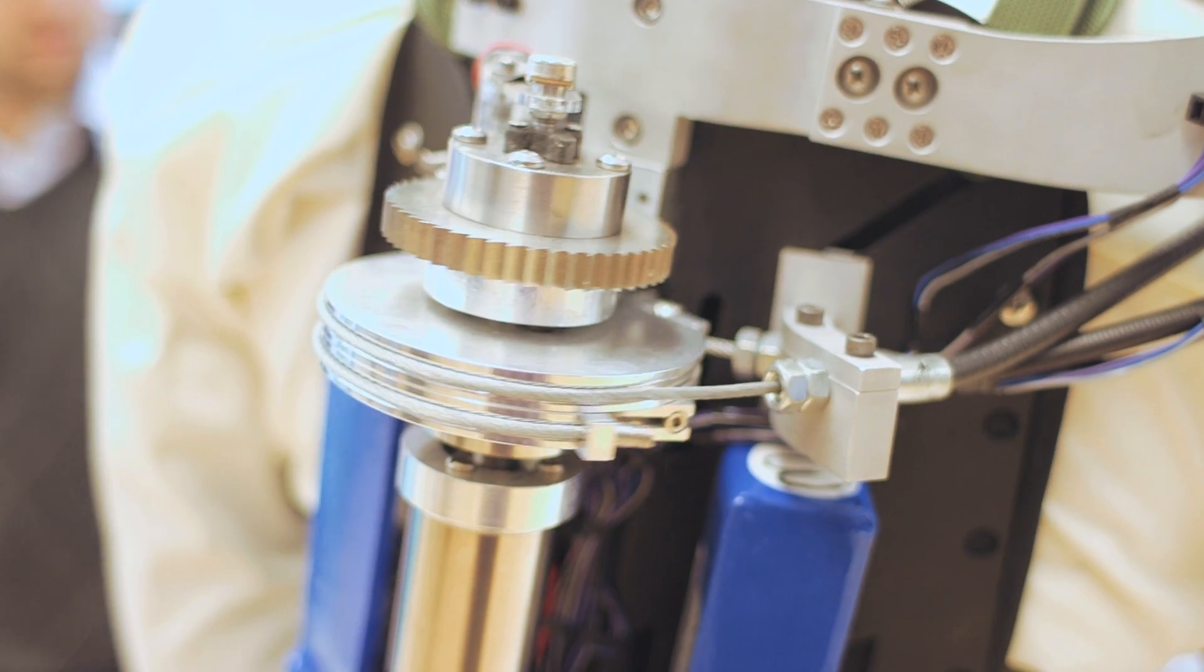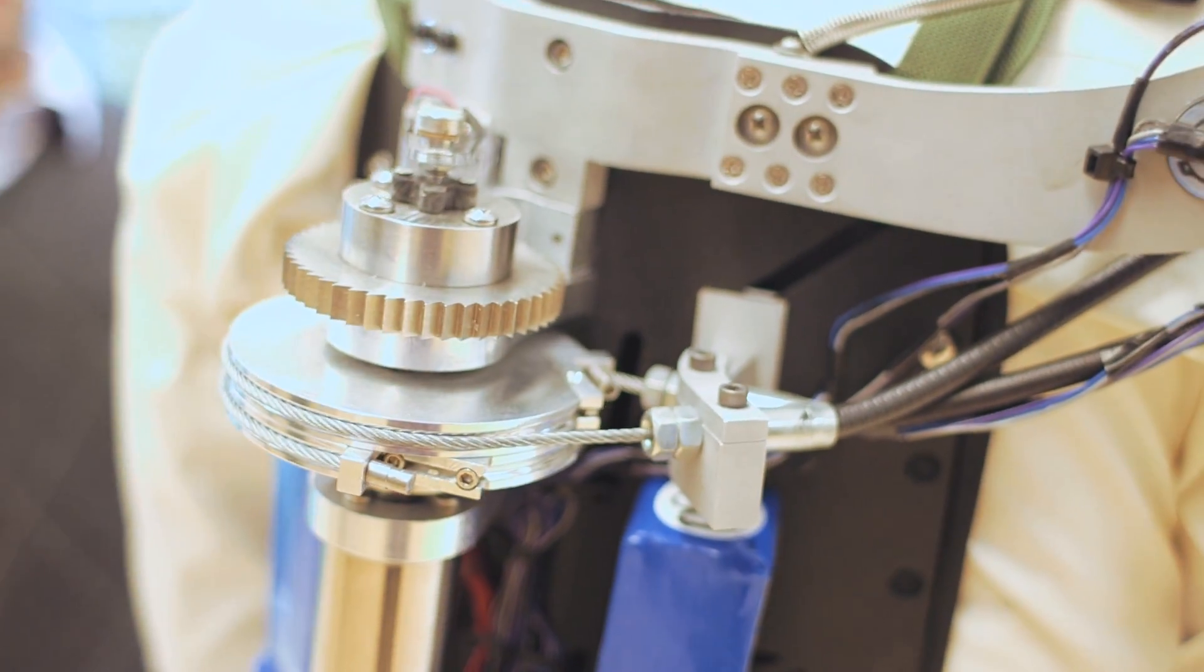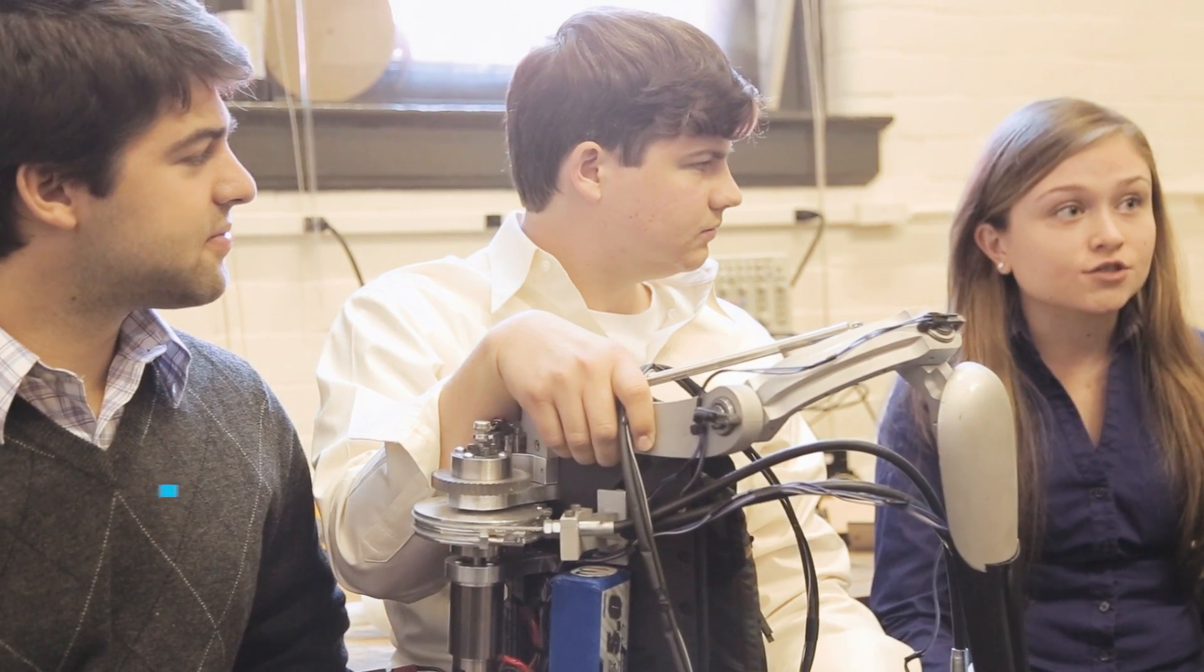The Titan suit augments a normal user's strength by 40 pounds. The Titan Arm can also help rehabilitate someone after suffering from an upper body injury.